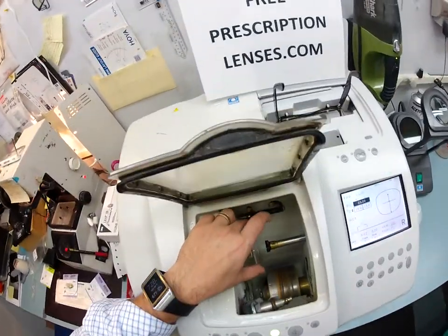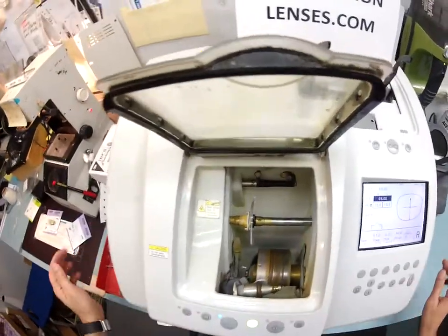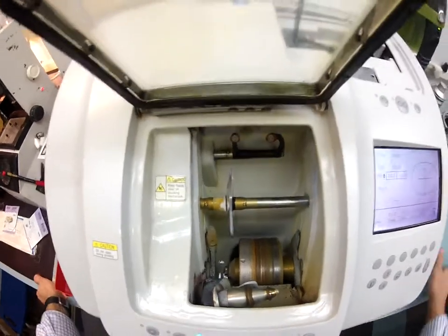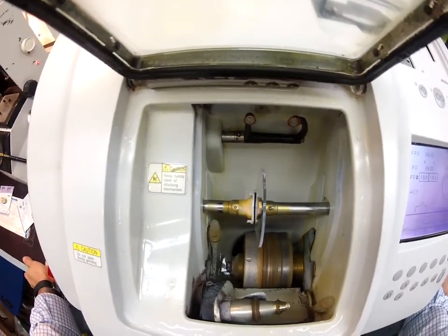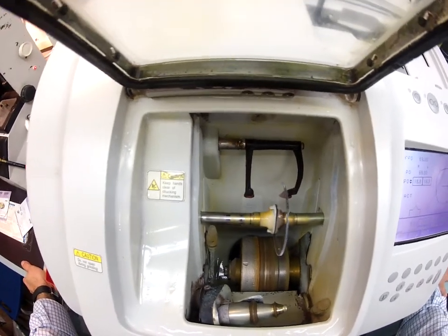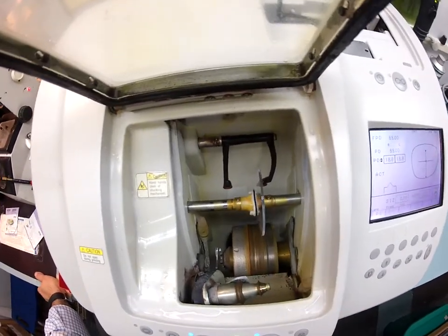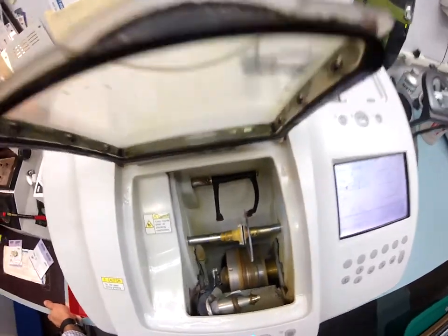I'm going to put your lens into the chuck — hello chuck, excuse me, Charles, I don't know you well enough. The LMU, which is this device, is going to come down and trace the shape of your frame onto the concave side of the lens first, which is closest to your eyelashes. Then it's going to scoot over and trace the convex side of the lens, which is away from the face, using the calipers to measure the thickness of the lens to know exactly where to put the bevel so it best fits inside your frame.